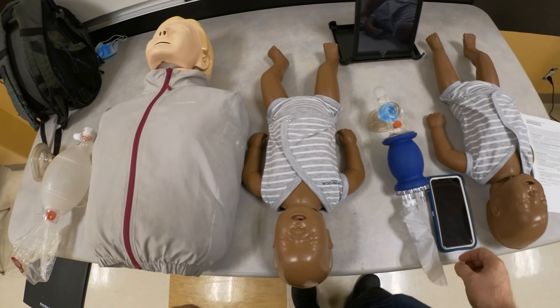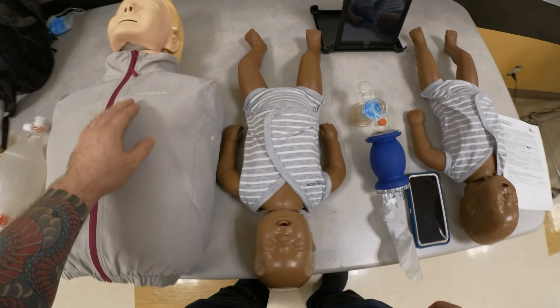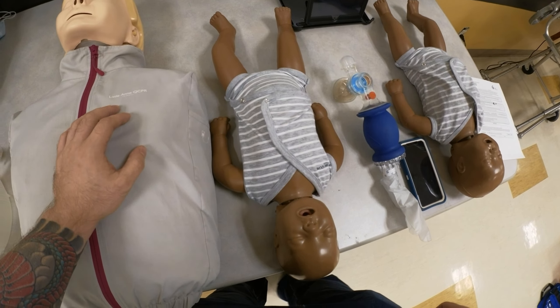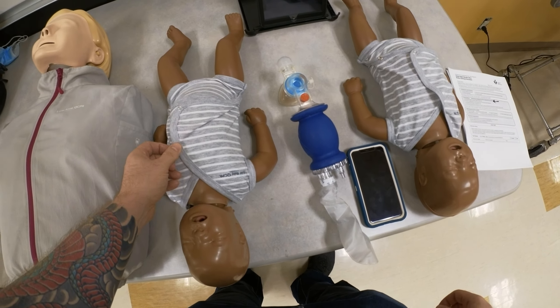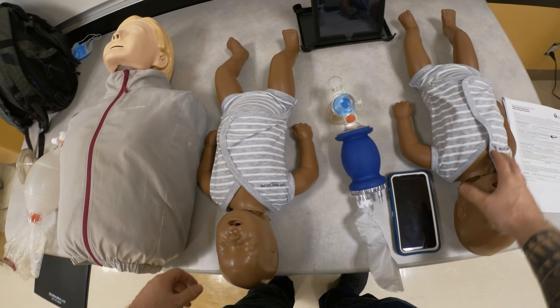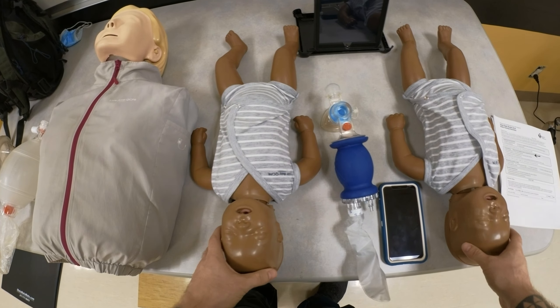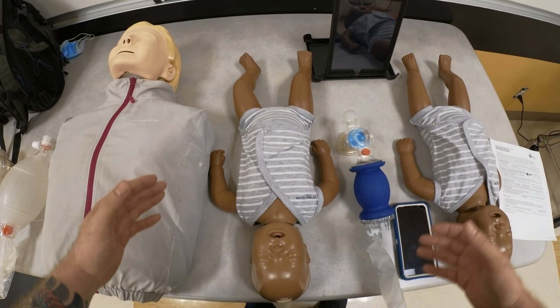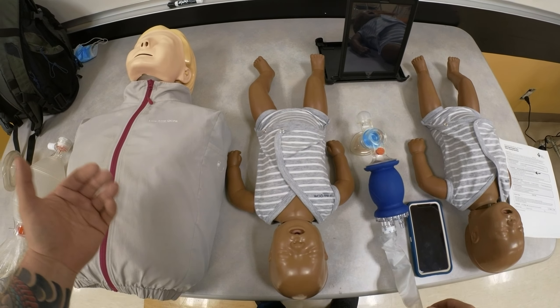I'm going to use the phone here. We have Little Anne QCPR, Little Baby QCPR, and another Little Baby QCPR, and I'm going to show you how to essentially pair them with your devices so that you can get audiovisual feedback.